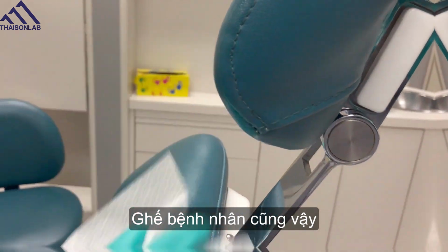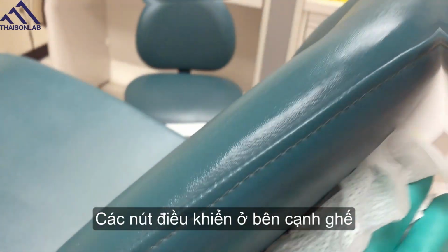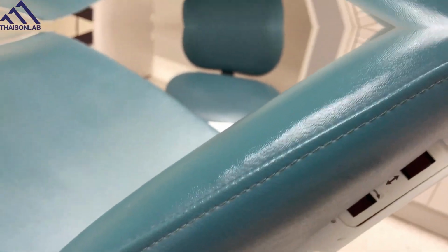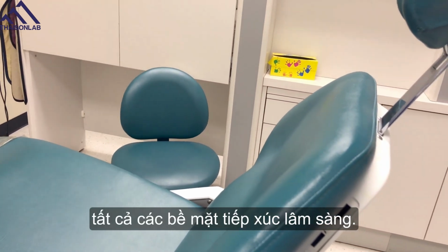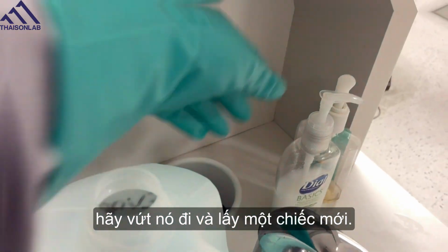Patient chair also. Control buttons on the side of the chair. Continue to go through and wipe down all surfaces, all clinical contact surfaces. When you're done with that first towelette, throw it away and take a new one.